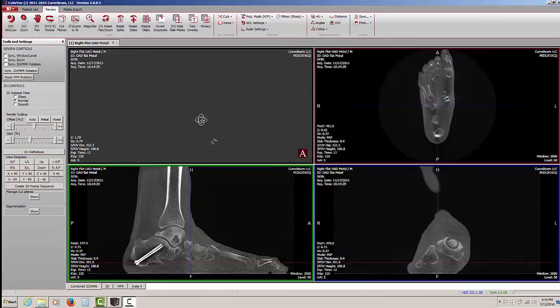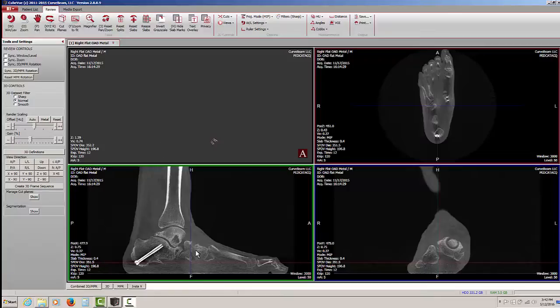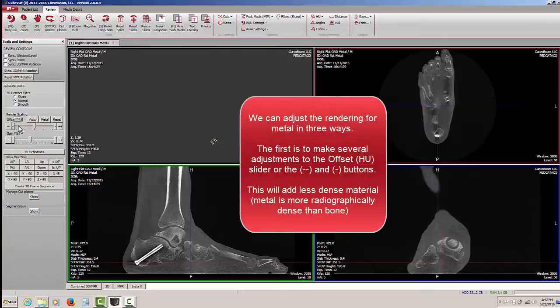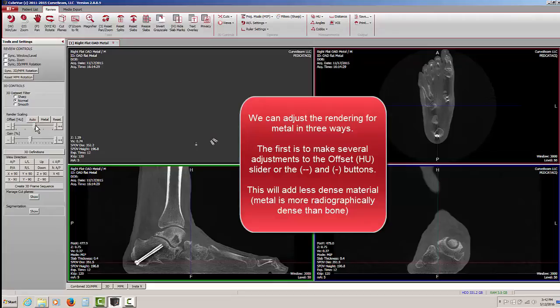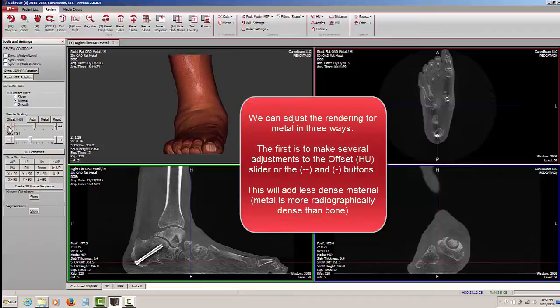Whenever you see essentially a blank window in the upper left corner where the 3D rendering should be, the first thing you should consider is that there's probably metal in the scan somewhere, and it's throwing off the rendering. One of the ways we can make adjustments is to go to the offset slider and make several passes or hit the double button until the anatomy starts to appear. That's one way to bring the image back into view.